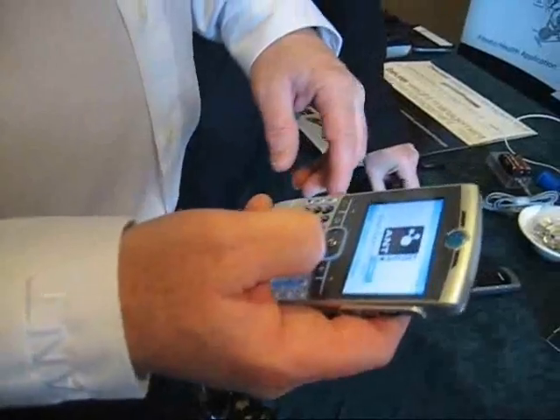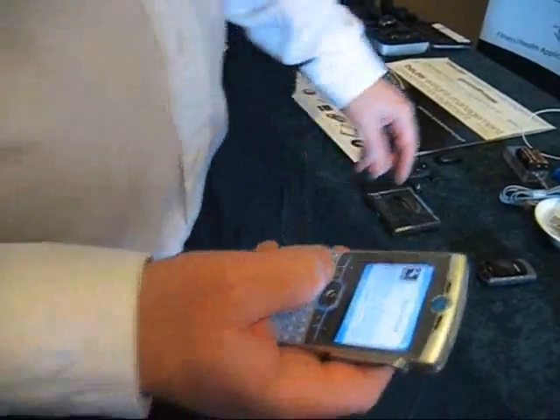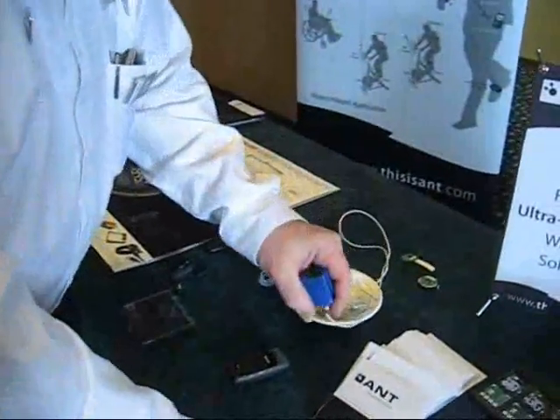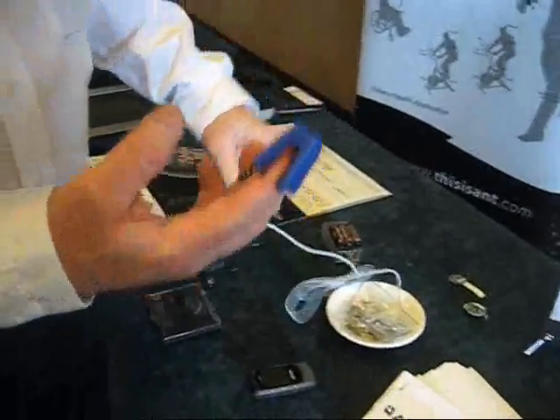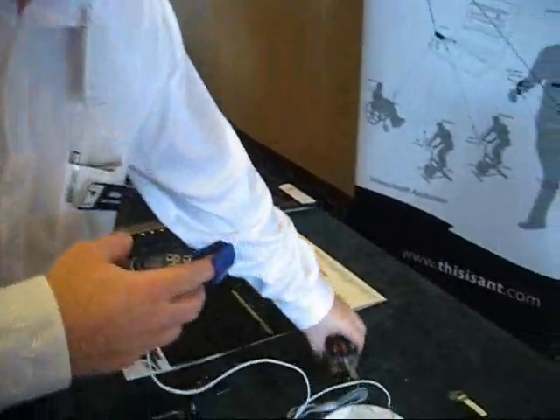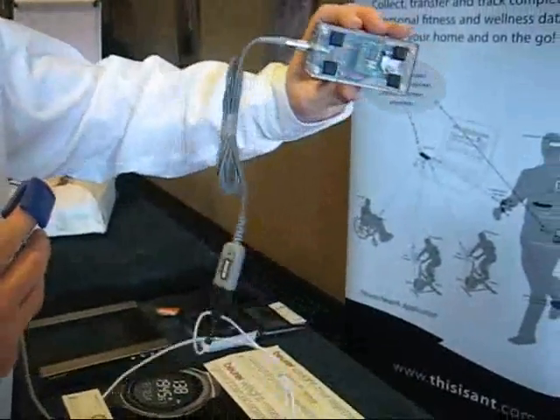So I'll look at the pulse oximeter first. This is an off-the-shelf Nonin pulse oximeter that we've just cracked open, and it's communicating from a radio platform in here — and you can see the pulse oximetry is going.